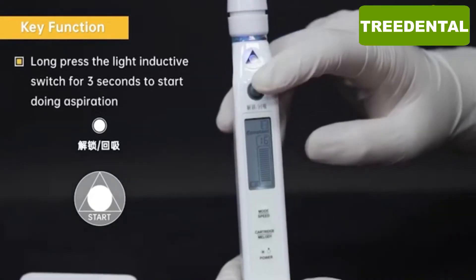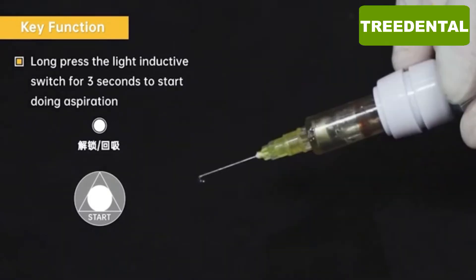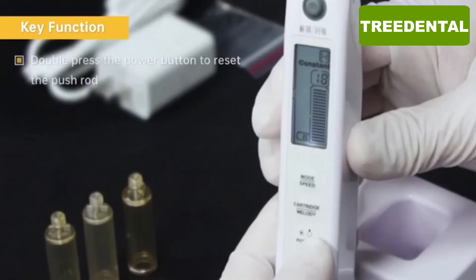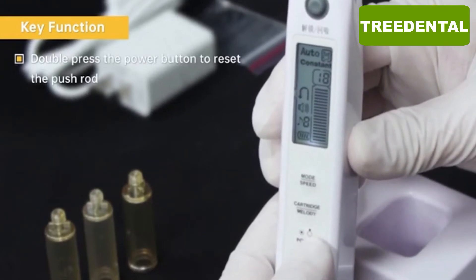Long press the light inductive switch for 3 seconds to start doing aspiration. Double press the power button to reset the push rod.